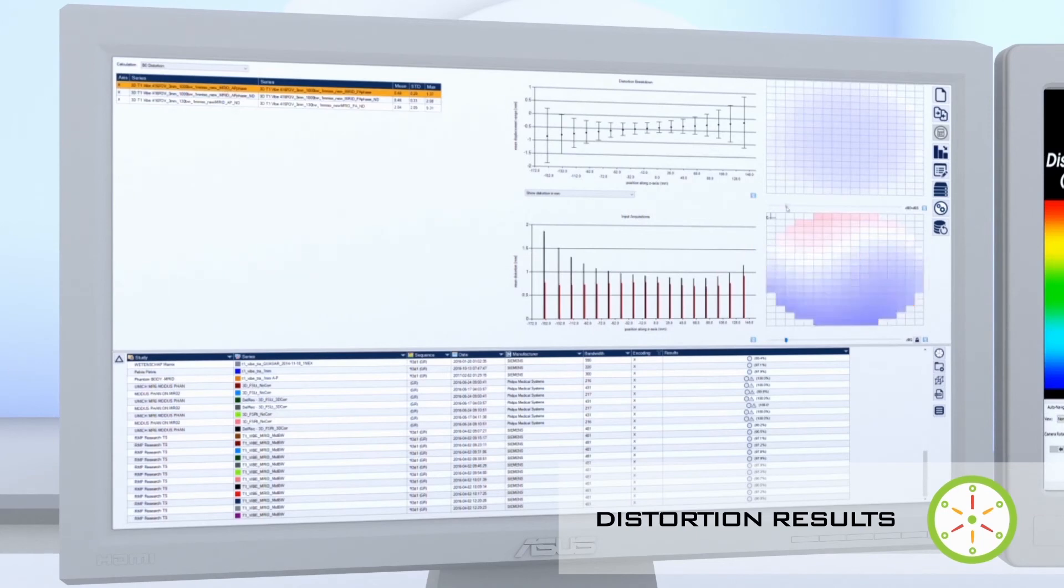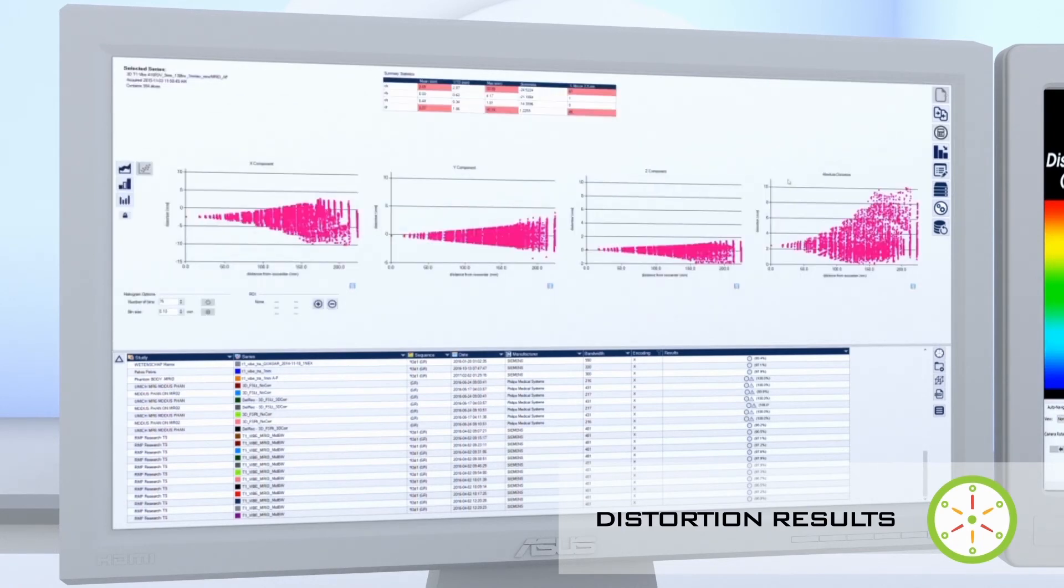Enriched analysis tools make it easier to examine the geometric distortion measurements of a single acquisition or compare the distortion among a collection of series.